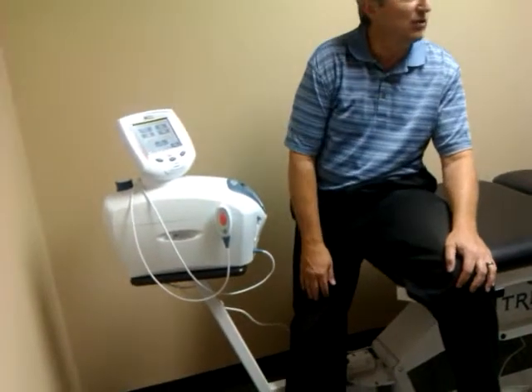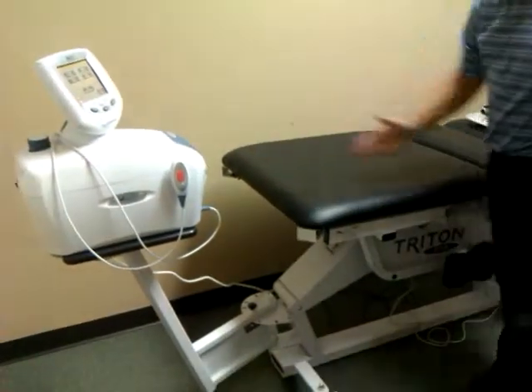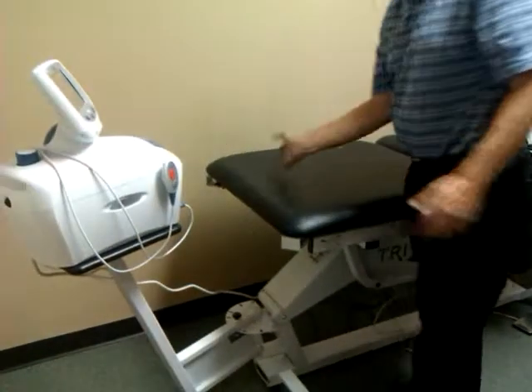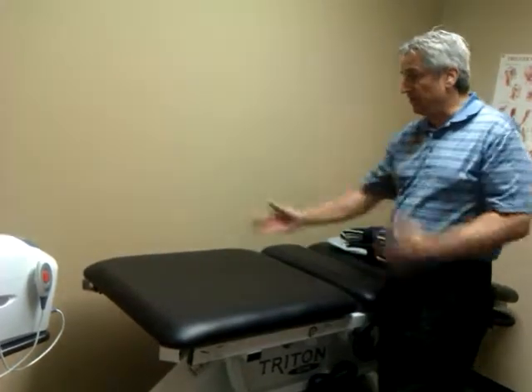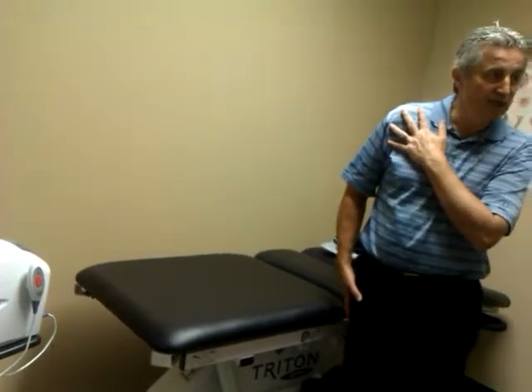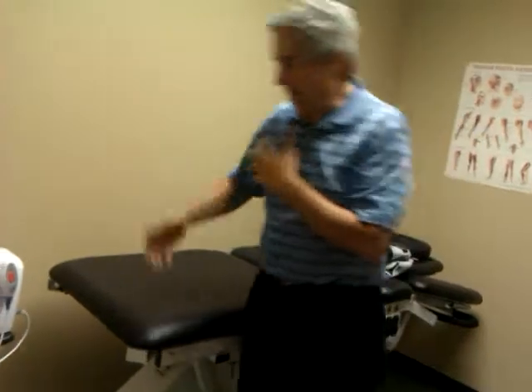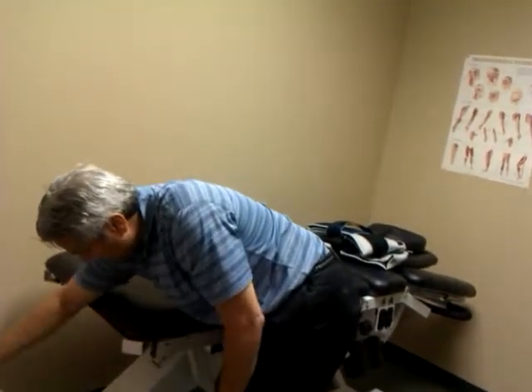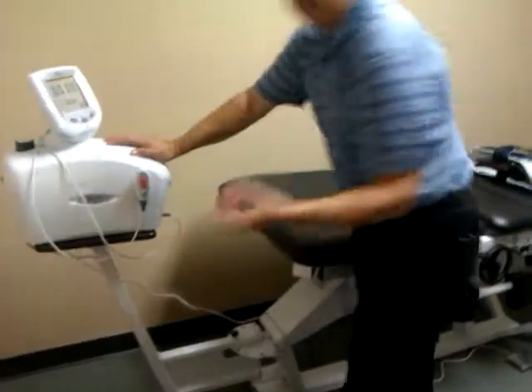This platform swivels. The reason for it is if you ever wanted to do different angles or pull directions — you could pull down the line or pull across the body. Biomechanically, if someone came in antalgic on the right side and you had them lie down, you could pull across the body to try to open up that short side. That's just using traction to help lengthen the muscles on the short side. There's a low handle here that locks into six or seven different positions — it's spring-loaded and the platform moves. It's a friction platform. Underneath there's a block nut that's not tightened all the way; if it seems a little off, just push it back to center.